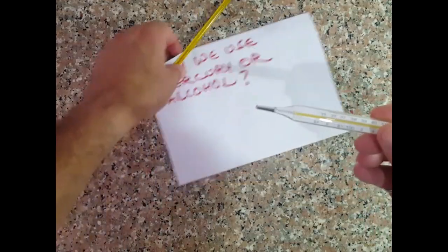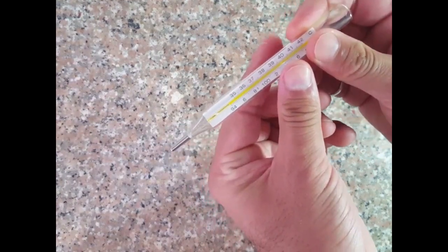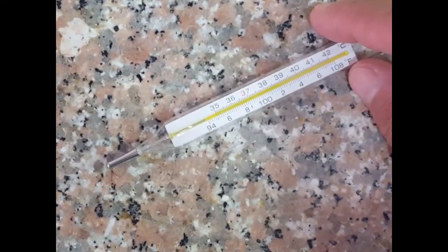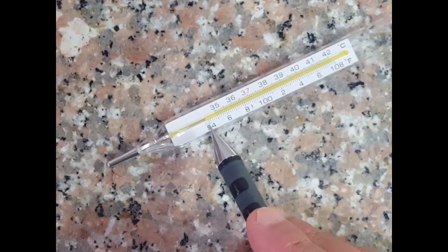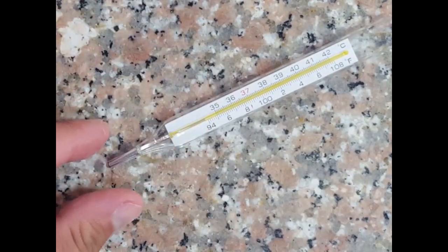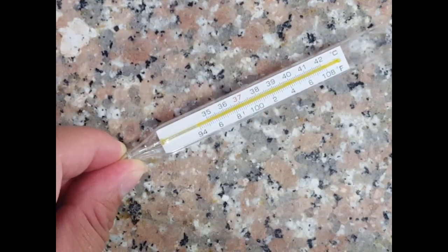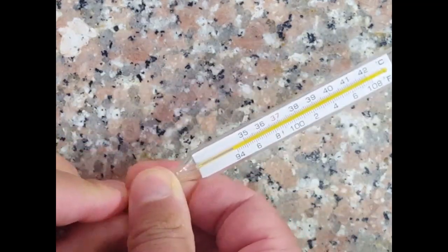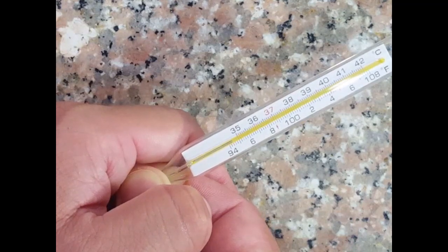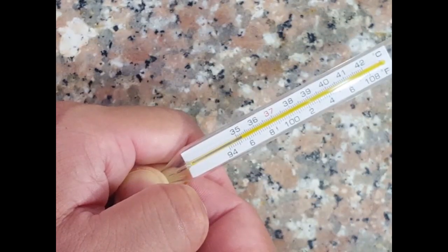Let us have a look at this thermometer. Let me zoom in and see what I intend to demonstrate. The temperature at this very moment is somewhere near 94, even below that. Now, you should never touch a bulb, but I'm going to touch the bulb and transfer heat from my fingers into the thermometer. As I touch the bulb, observe what happens to mercury. Do you see the mercury expanding rapidly? That is why we make use of mercury — because it expands really rapidly.